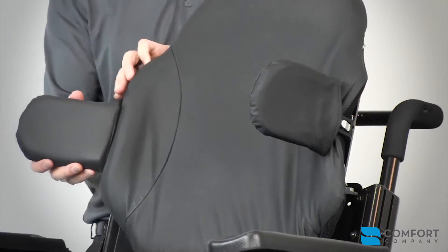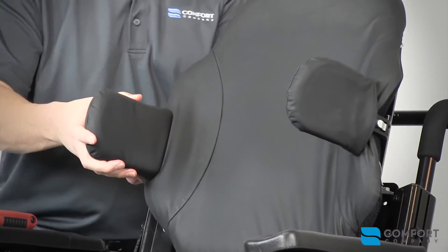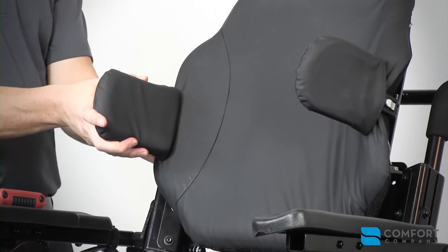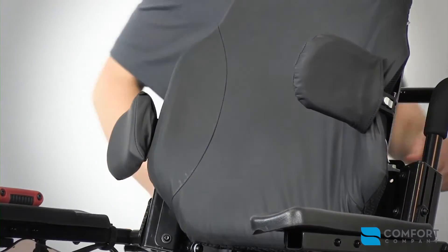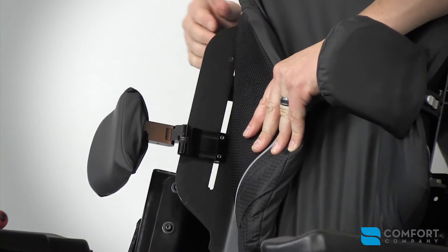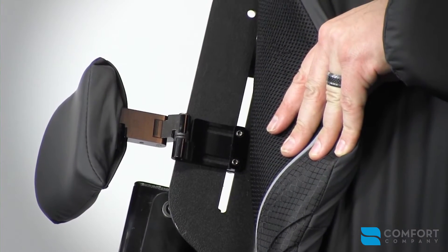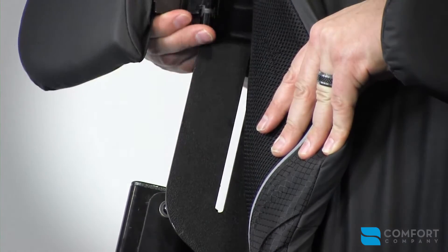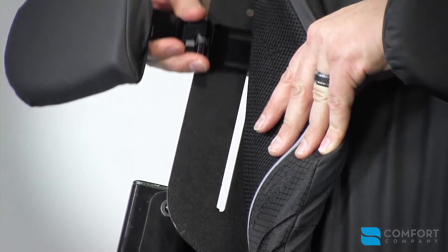When loosened, you can see the range of motion — full width and medial. Another feature that we have is a slot mount. There are two bolts located on the back side that you can loosen, which allows you to slide the lateral hardware up and down the slot.